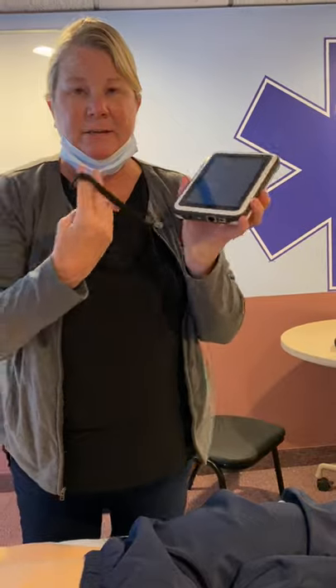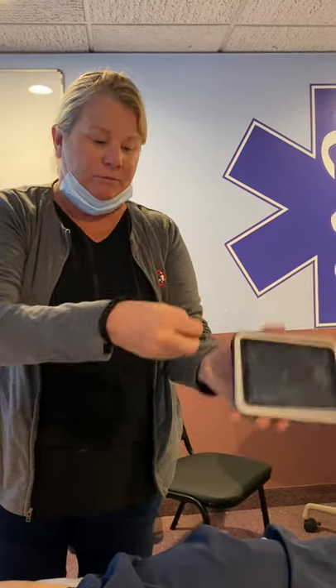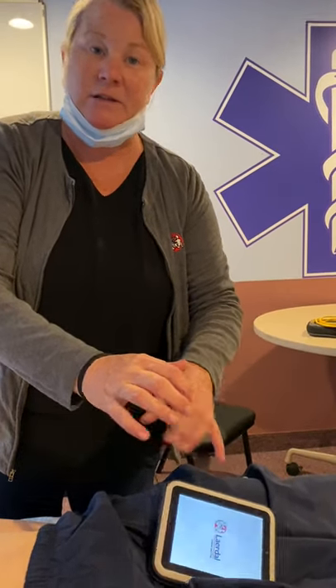This is very important. When you grab this SimPad, you always want to have this wrist strap in your hand. It's an adjustable wrist strap, so you can move it up and down based on the size of your wrist. I do recommend you keep this wrist strap on because that's going to protect your SimPad from falling in the event of any kind of loose maneuver.